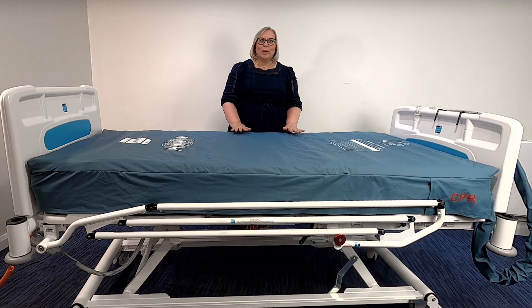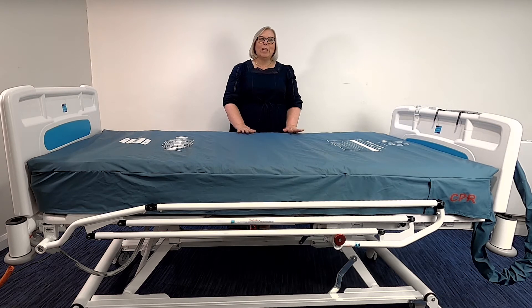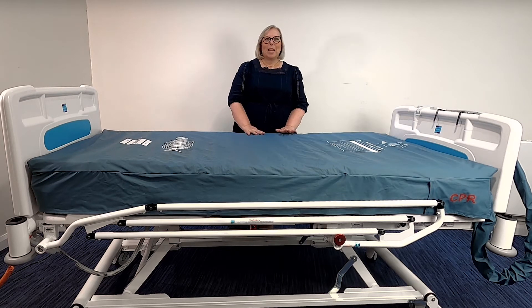However, you always need to ensure that monitoring and repositioning of the patient is carried out as per their individual care plan. A risk assessment should also be performed to ensure the suitability of the patient and any contraindications such as an unstable spinal injury. For those patients of a very low weight, typically less than 40 kilograms with a physical size of less than 146 centimetres, clinical judgment really needs to be used to determine suitability. Support platforms used with the mattresses can vary greatly depending on the specific healthcare setting.